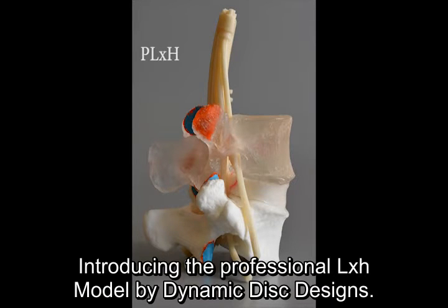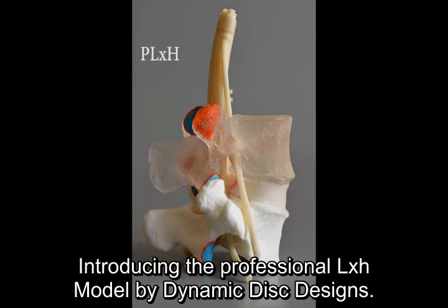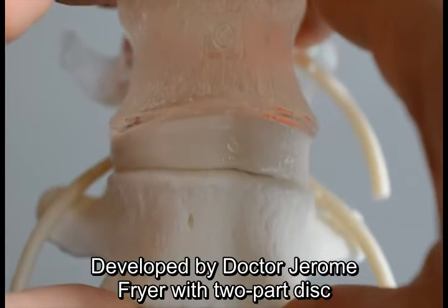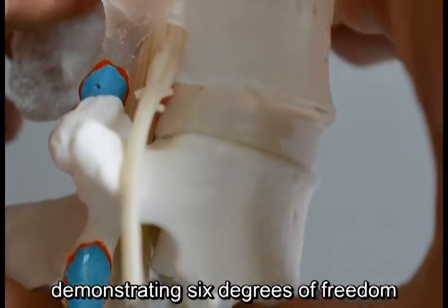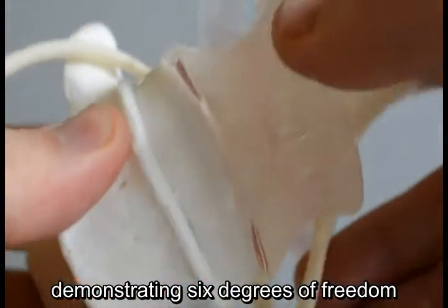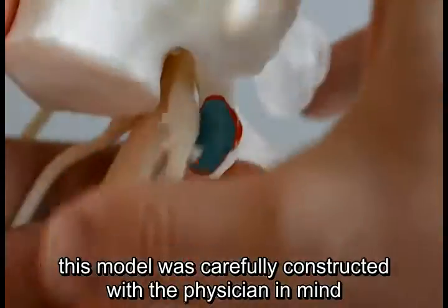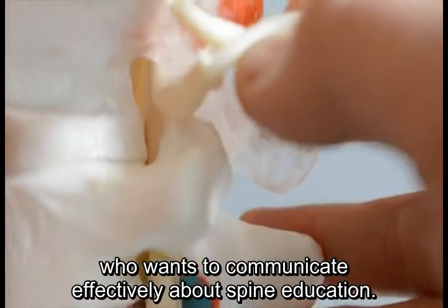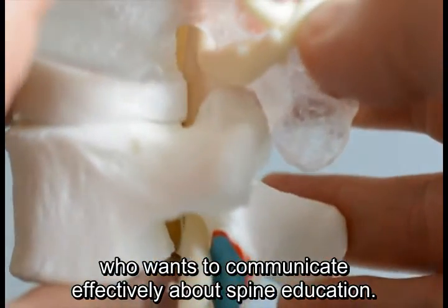Introducing the Professional LXH model by Dynamic Disc Designs, developed by Dr. Jerome Fryer with a two-part disc demonstrating six degrees of freedom. This model was carefully constructed with a physician in mind who wants to communicate effectively about spine education.